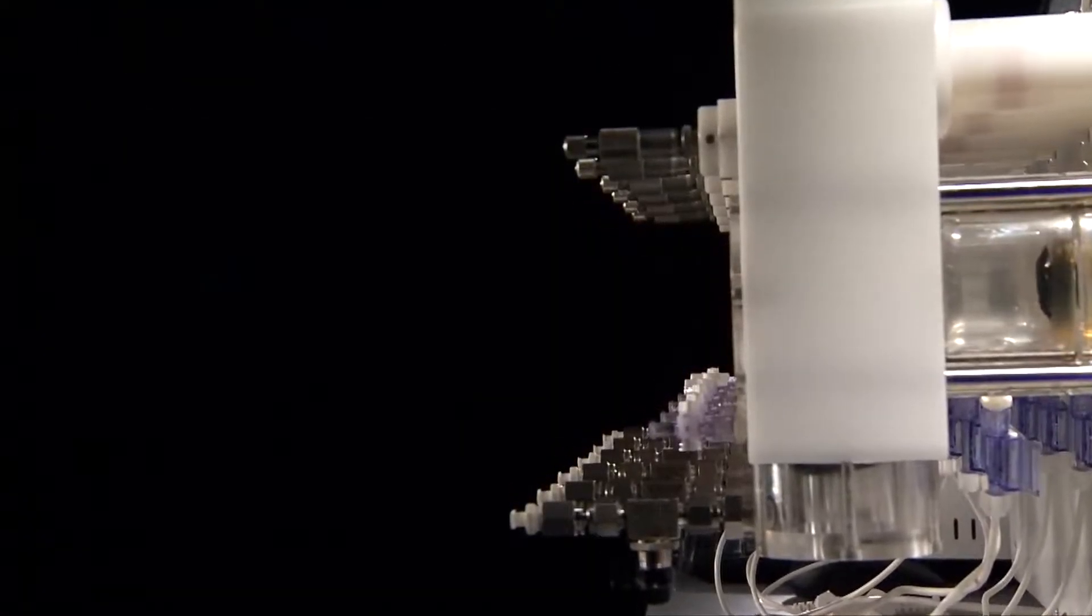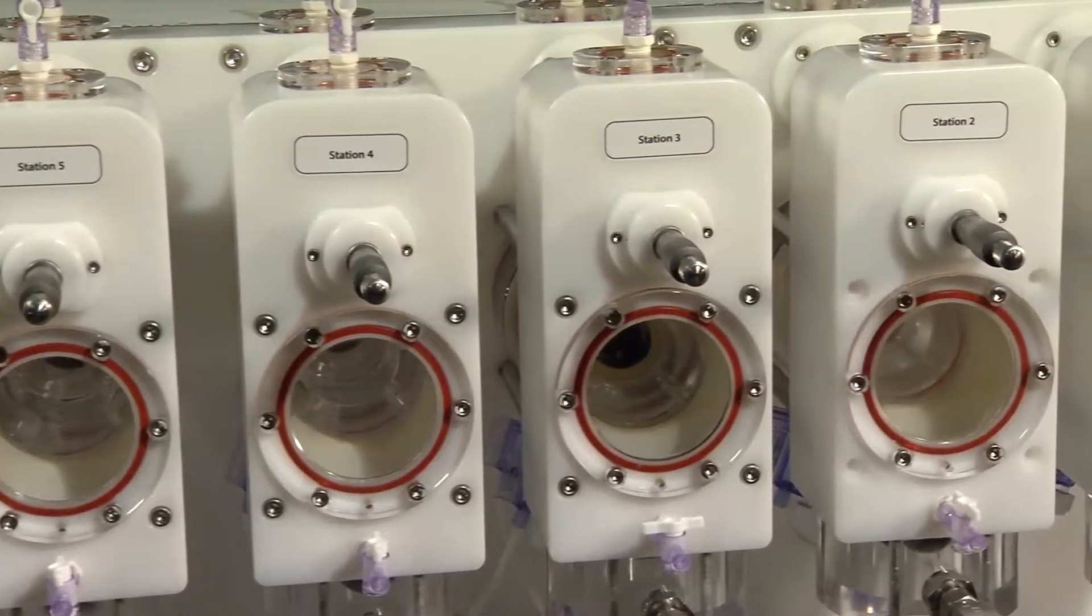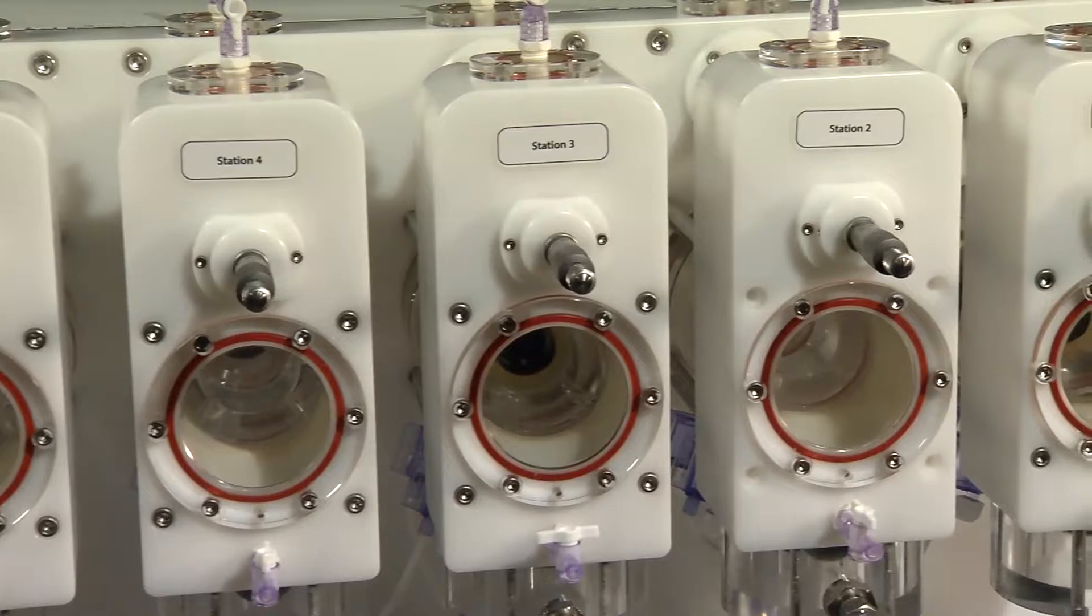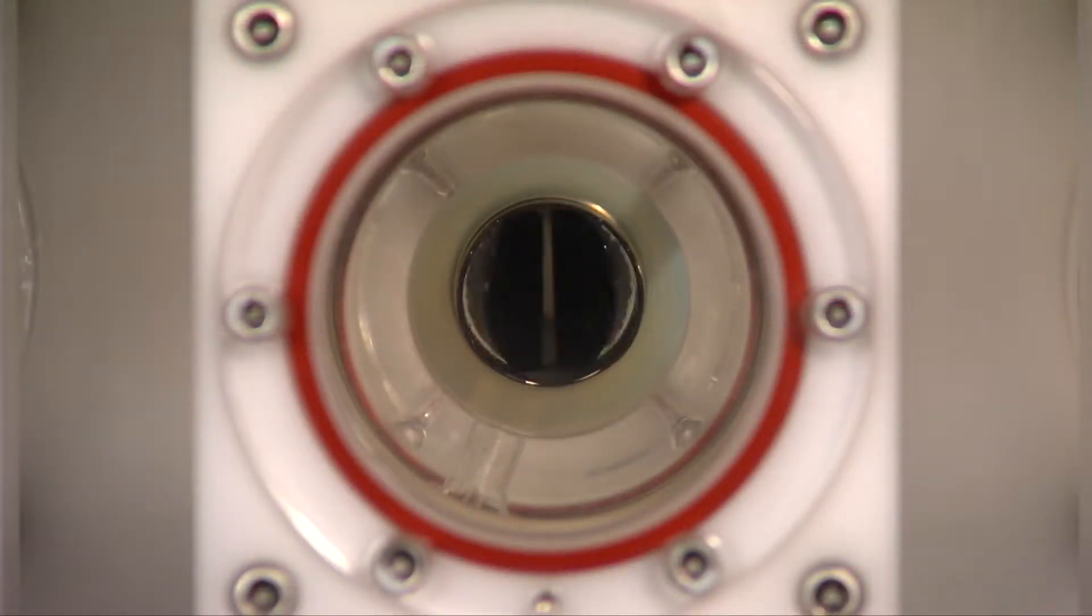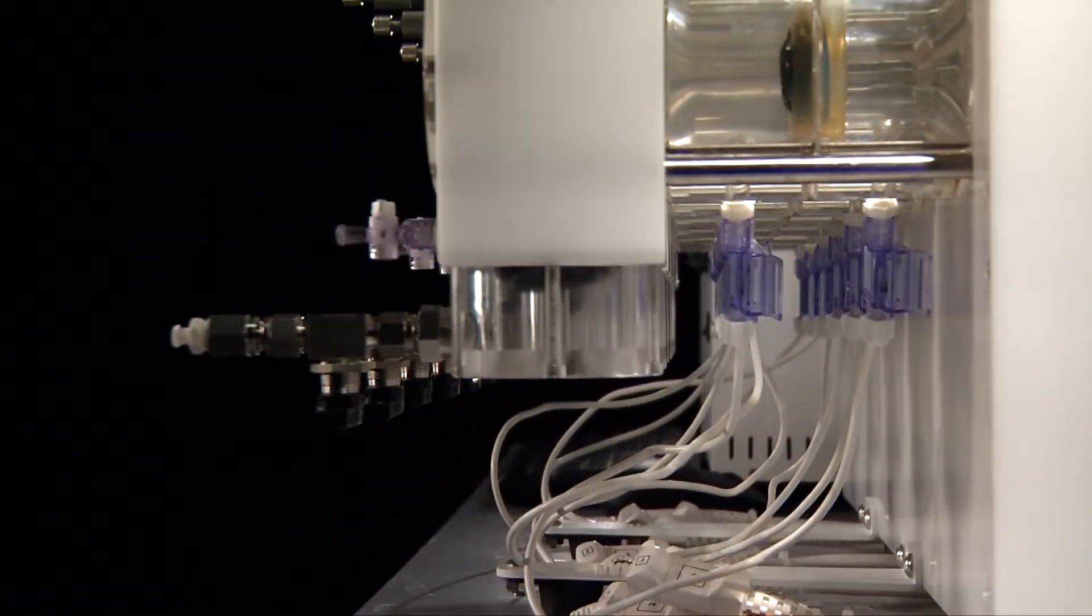The VDT3600i Heart Valve Accelerated Wear Test System represents the industry's most innovative approach to comprehensive valve durability testing. Its patented revolutionary design greatly increases the speed and efficiency of the testing process by offering multiple completely independent stations with independent drivers.